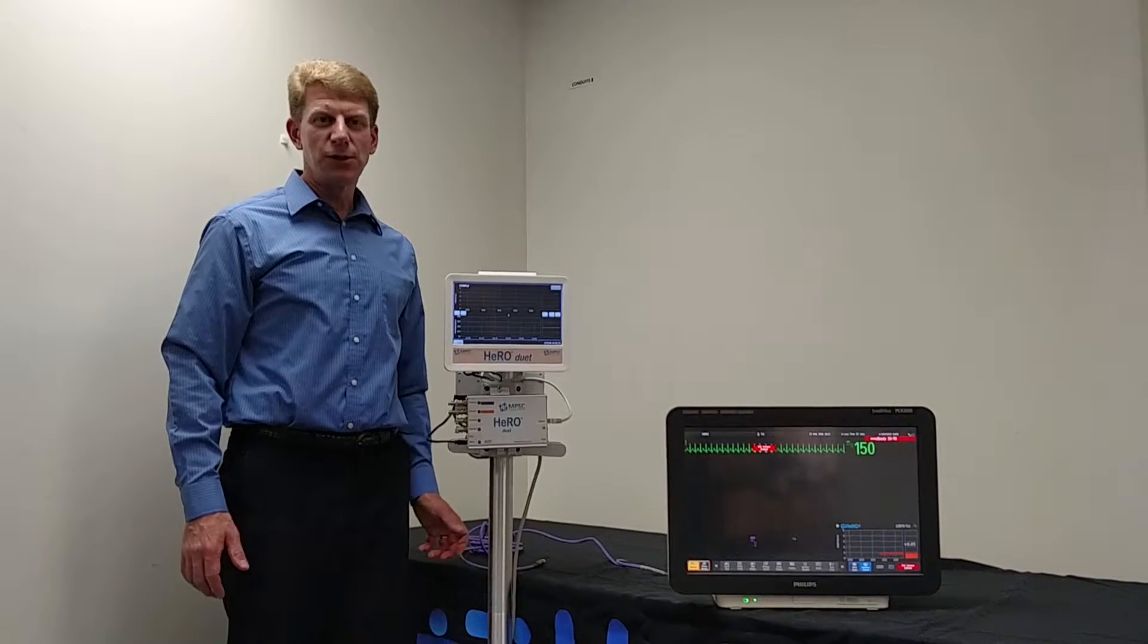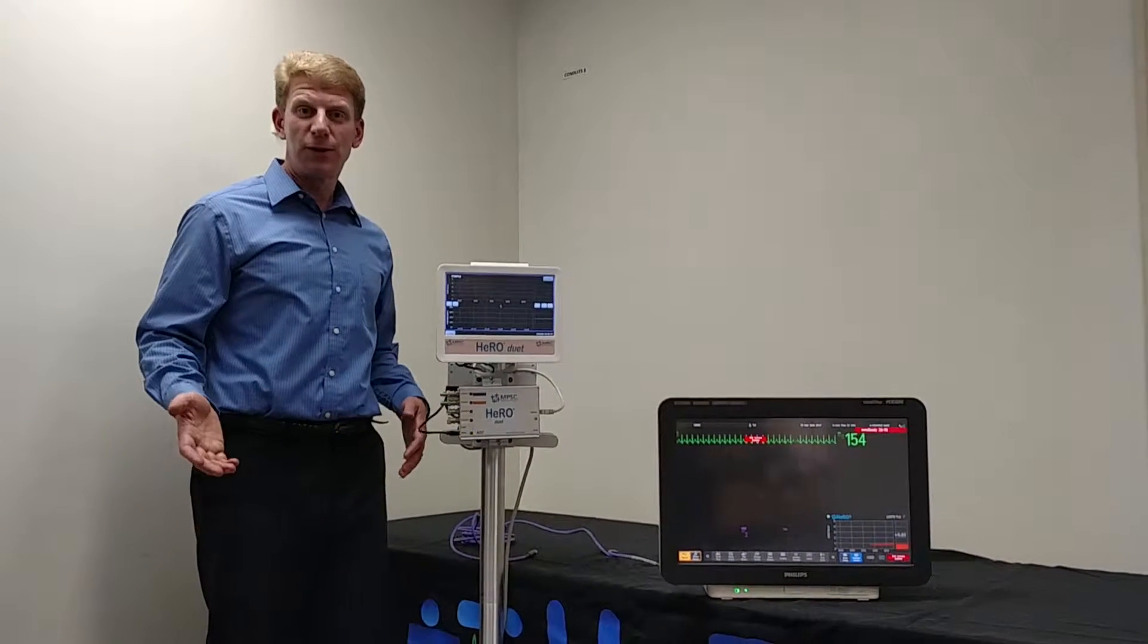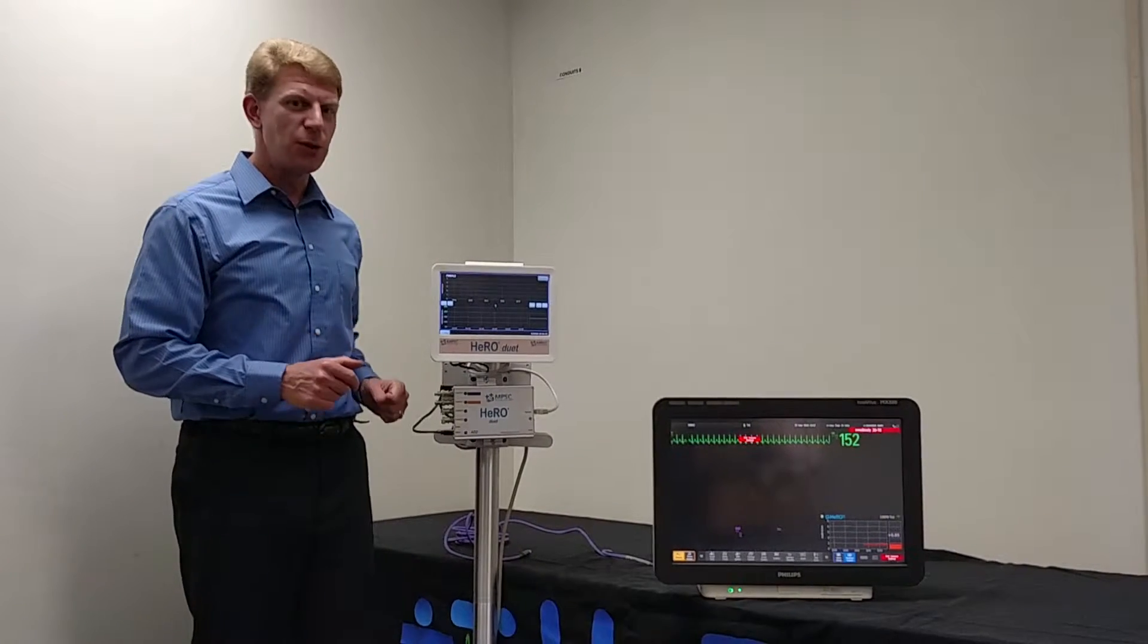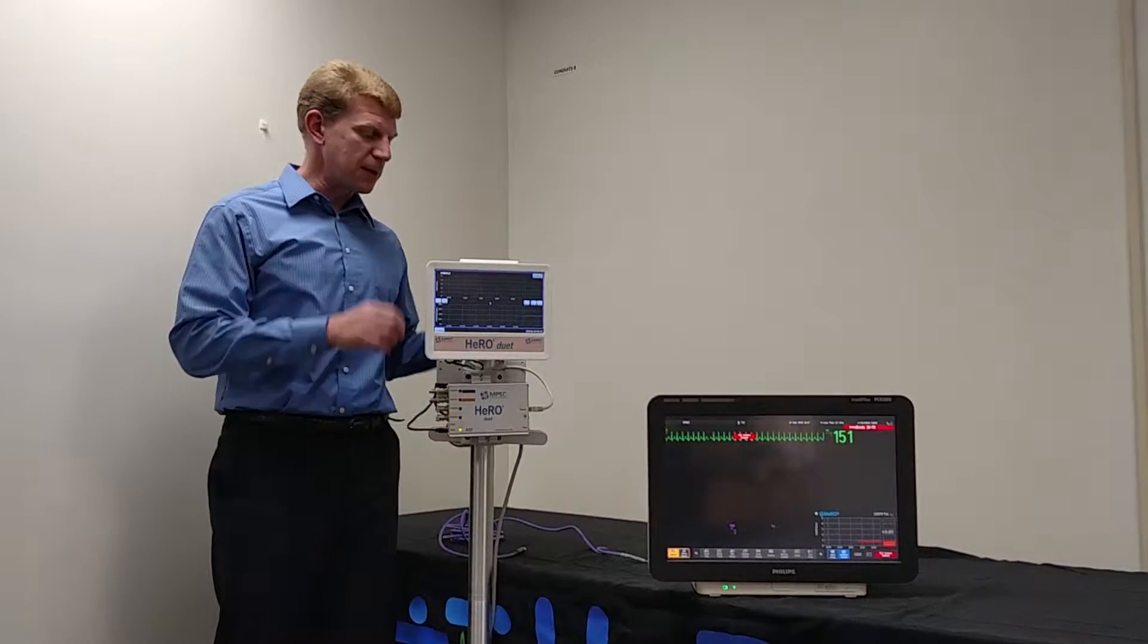We're going to show a quick demonstration of how to hook up a Hero Solo or a Hero Duet. The only difference between the two of them is one channel versus two channels, so it's just a second repeat of the same thing.